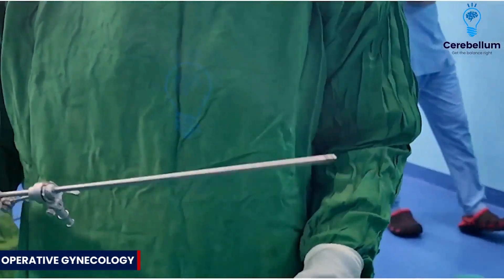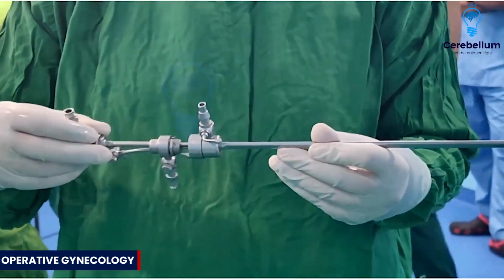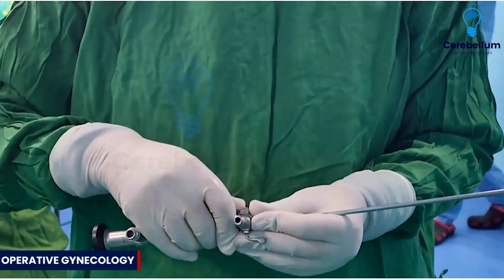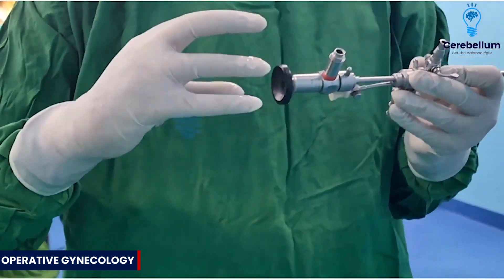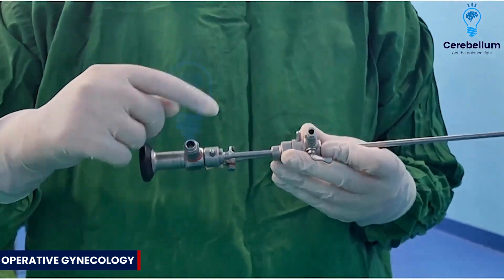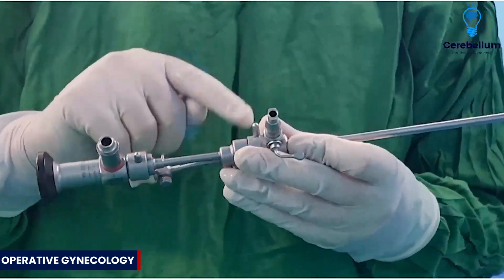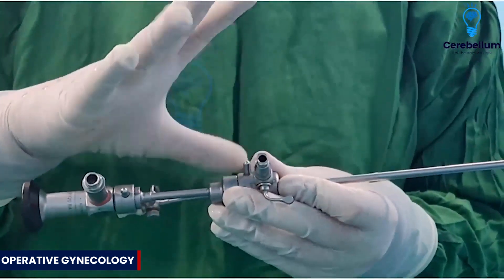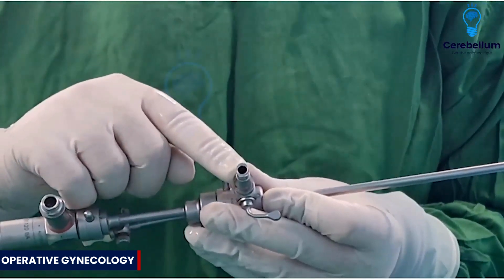That's the scope in the sheath — that's the inner sheath, and now this is the outer sheath. So you have a sheath through which the scope is put. Now you can attach the camera head there, the light source, inflow and outflow tracks, which I'm showing, which distend the uterus with fluid media.